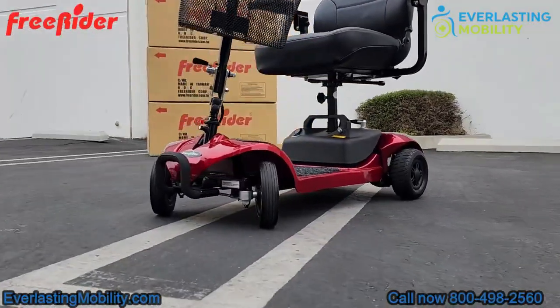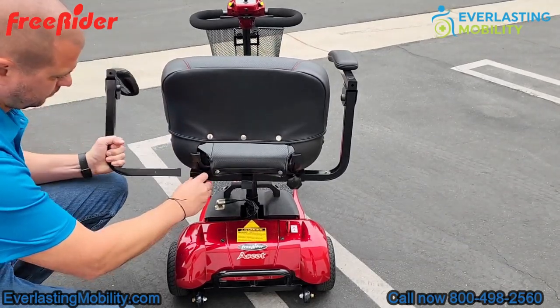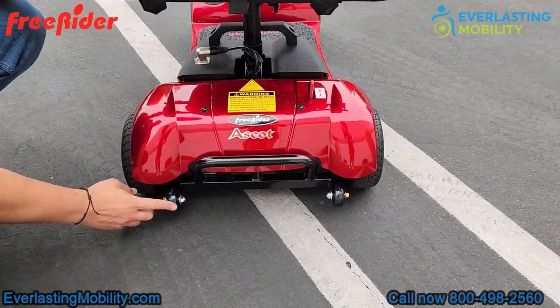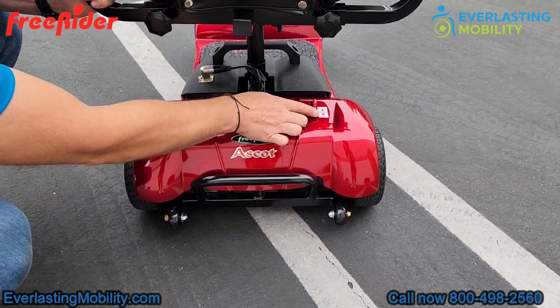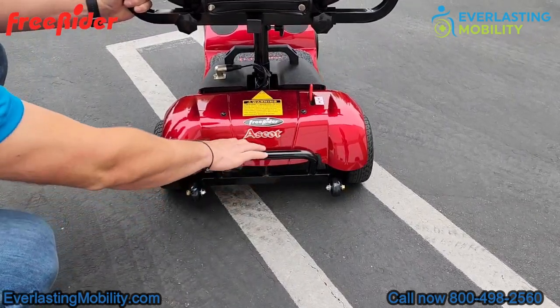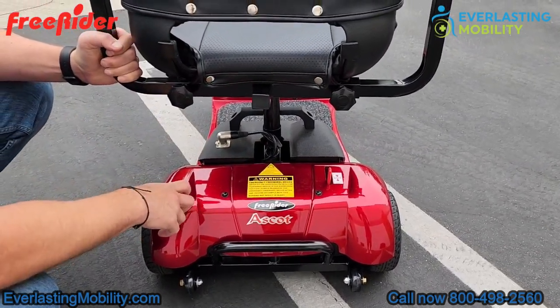The Ascot 4 is a nice four-wheel portable mobility scooter for someone that's on a budget. The armrests are adjustable in width — just unscrew either of these knobs and you can adjust the width outward, or even remove the armrest entirely. The two small wheels at the rear are anti-tip wheels to prevent tipping backward on a steep incline. This little lever is your freewheel lever — press it forward to put the scooter into freewheel mode so you can push it if you run out of battery. Just keep in mind you have to press it back into the drive position before operating.